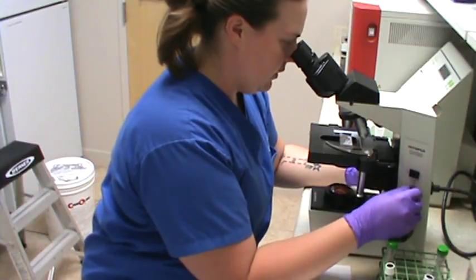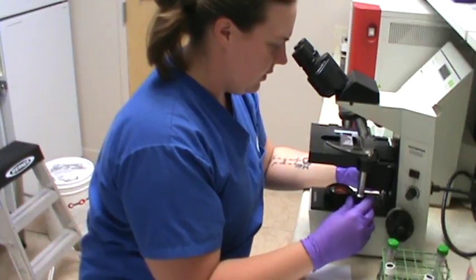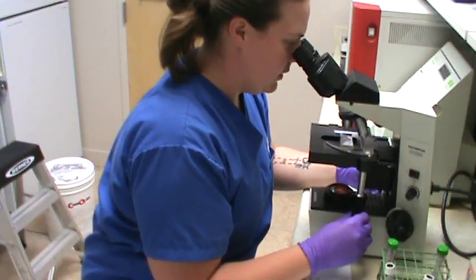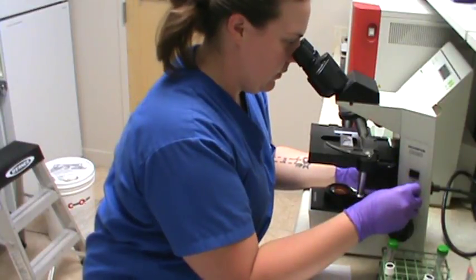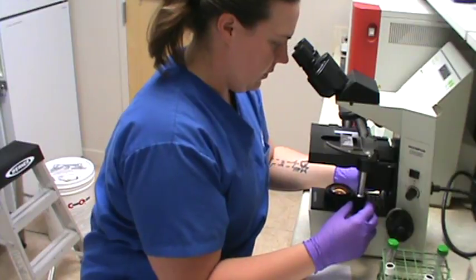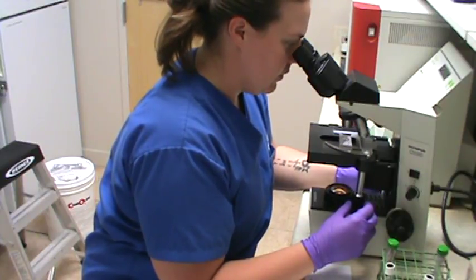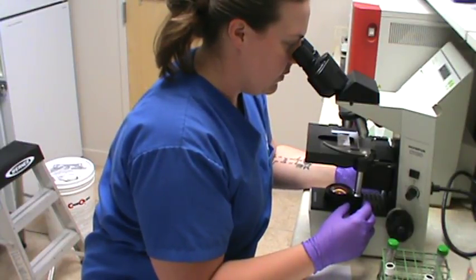Turn down the lights. Just gotta fine tune it. And I'm looking around, I am not seeing any agglutination at all.